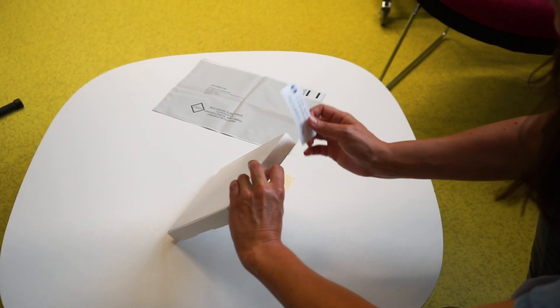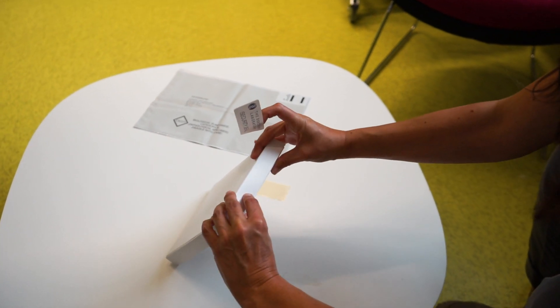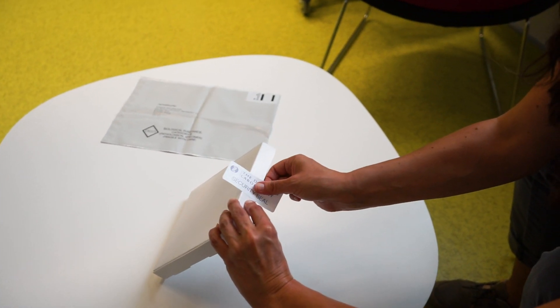Place the completed test request form and labeled sample into the white box. Before you seal the box with the security sticker, please check you've labeled everything accurately and clearly.